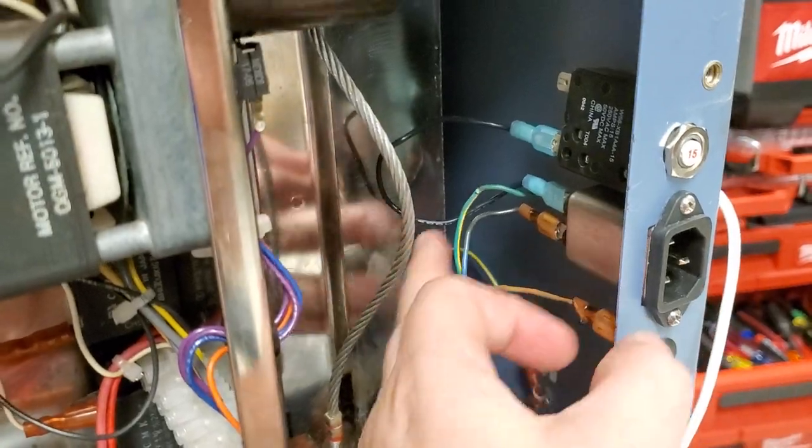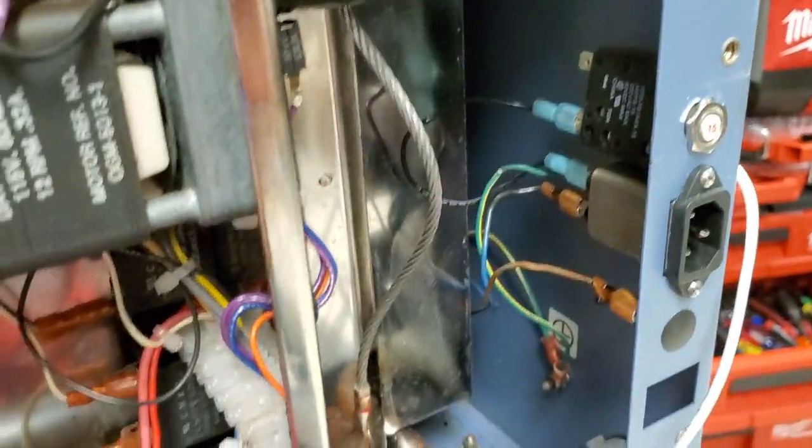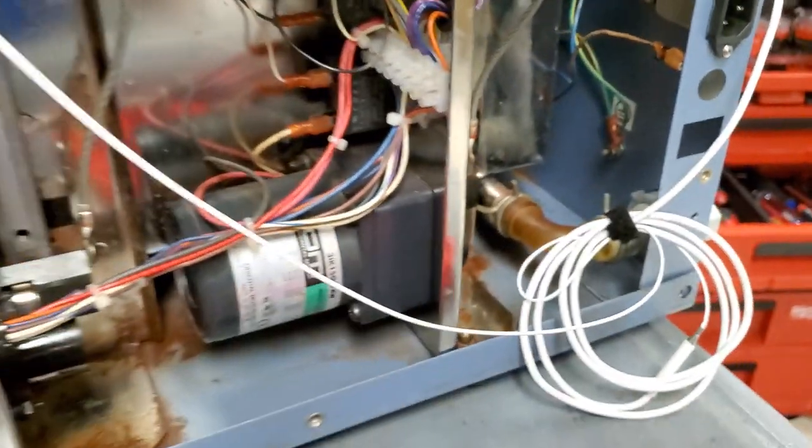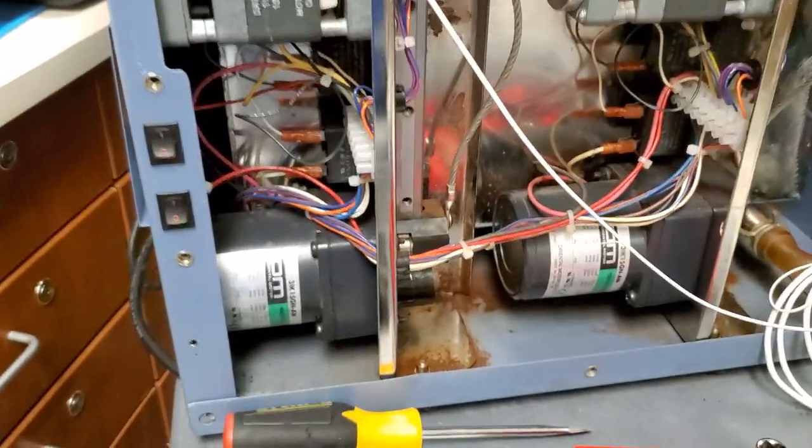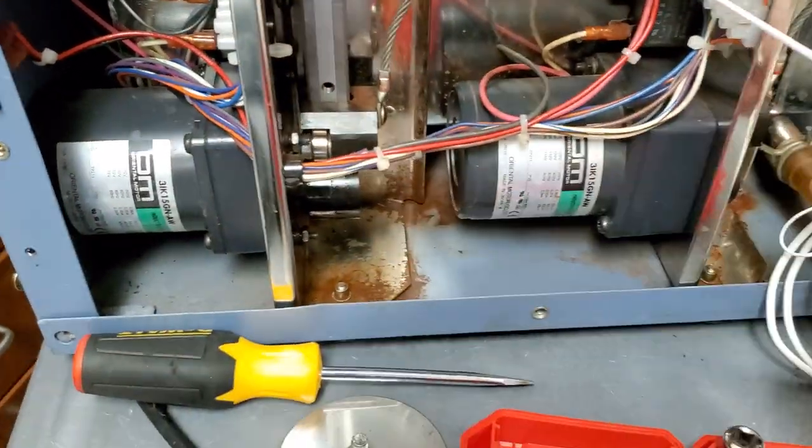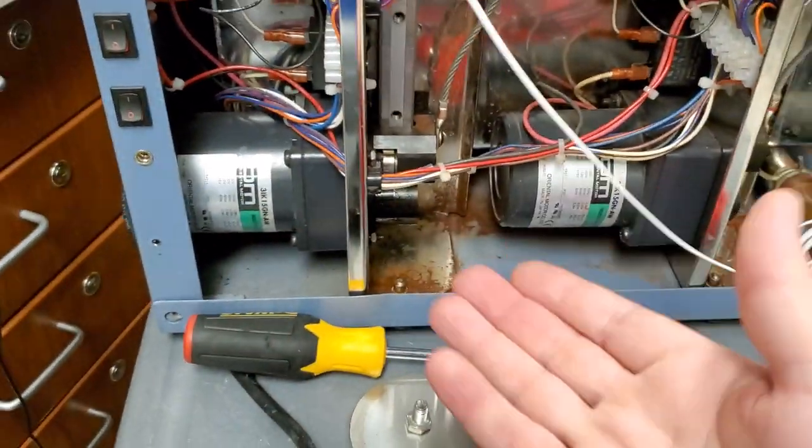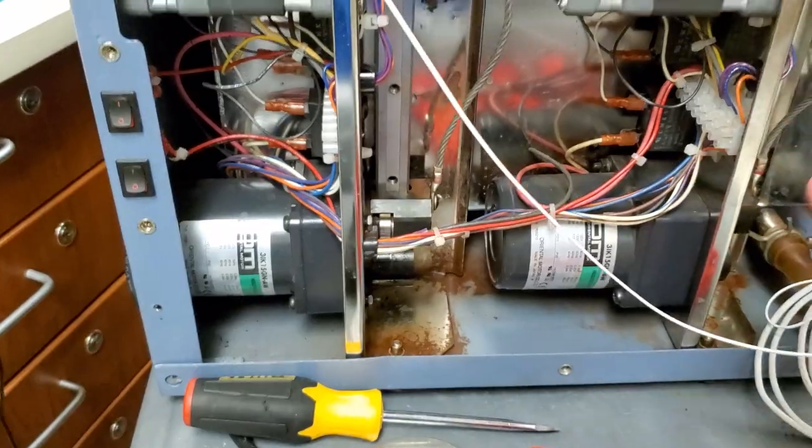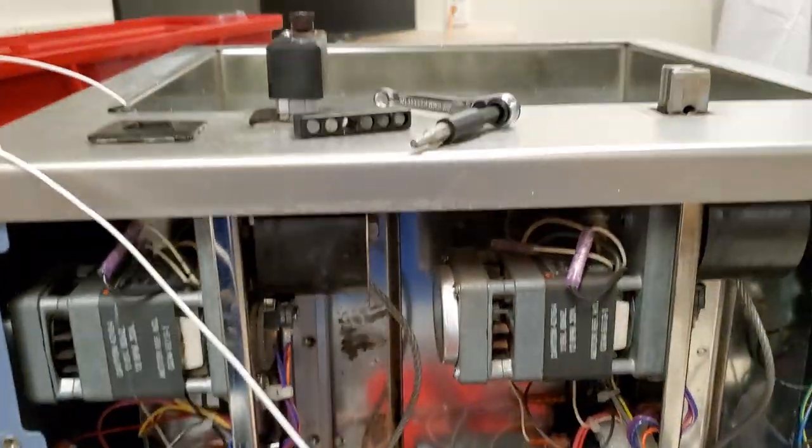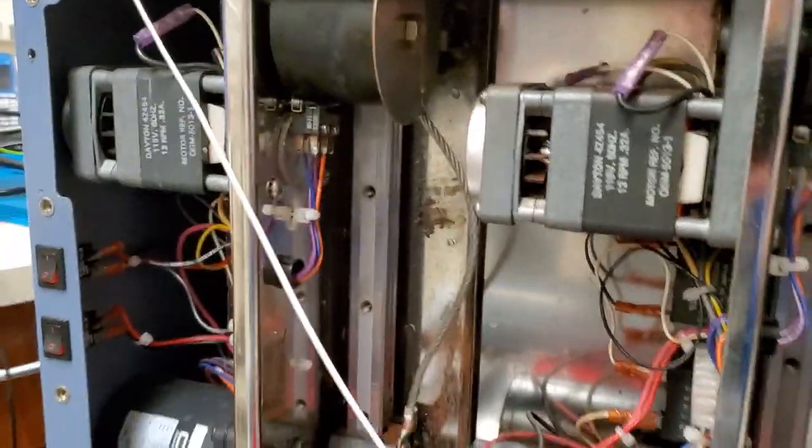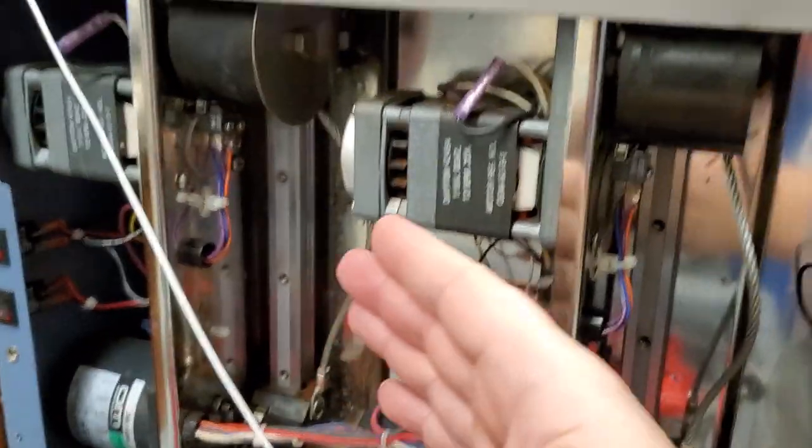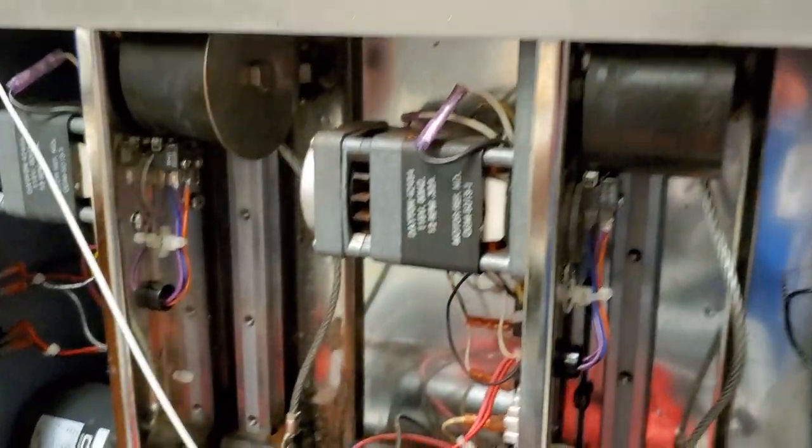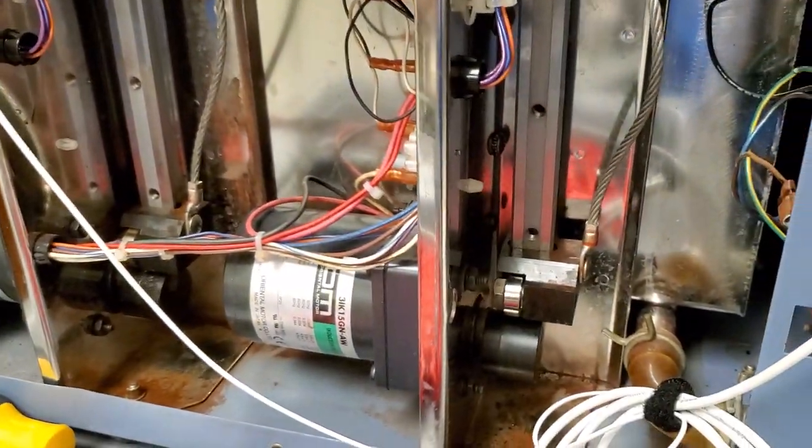I've already checked for abrasions because this case is very jagged in here. So it's not a very service-friendly device. The only way to get into it, I have to pull the feet and some perimeter screws on the bottom and tip it over, which is such a pain. And one of the reasons I have to get in there is because here are some linear rails right here. That's for your agitating trays. Take a look at this guy.